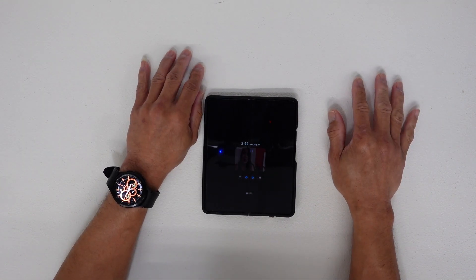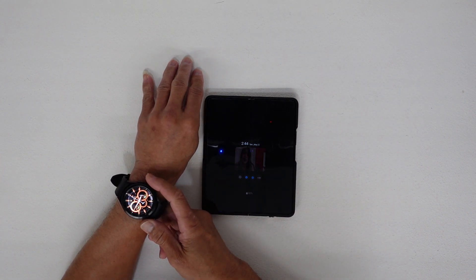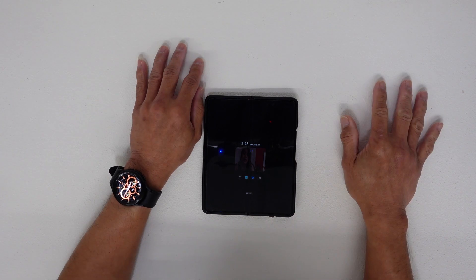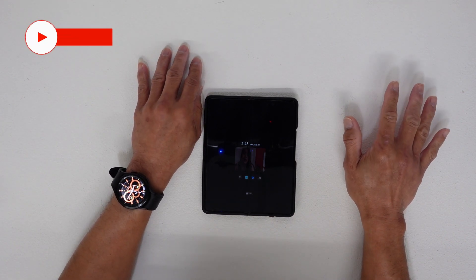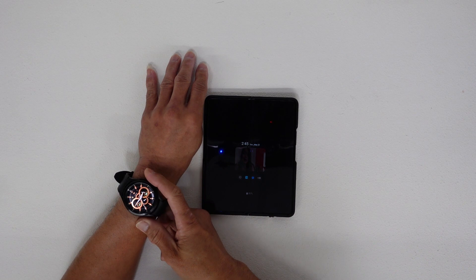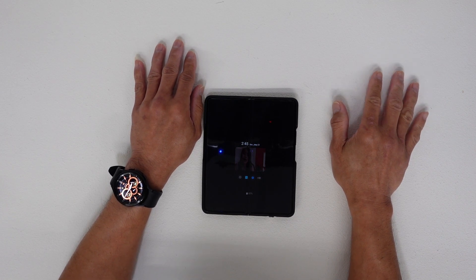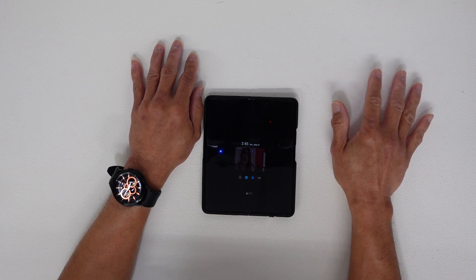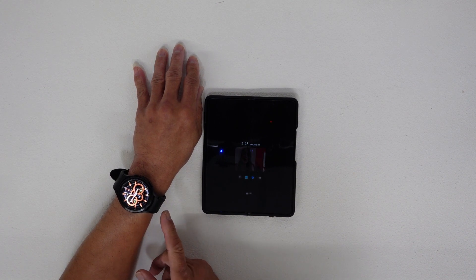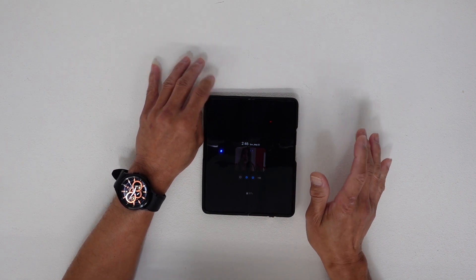The reason why I purchased this Galaxy Watch 4 was because of the blood pressure monitor and ECG features. But when I started using it, I couldn't find them — it turns out ECG and blood pressure monitor are not allowed in Canada. But with this new update, there's a blood pressure monitor and ECG now, and I'm so happy I can always monitor my blood pressure and ECG.